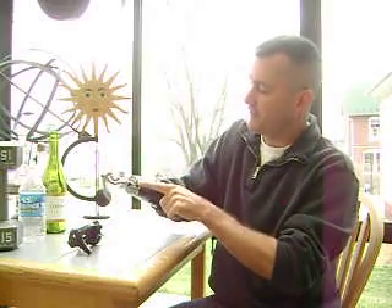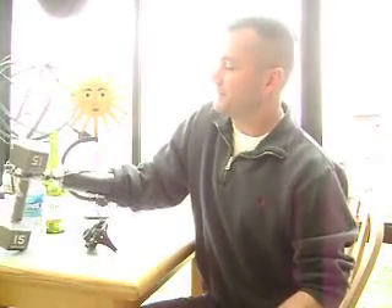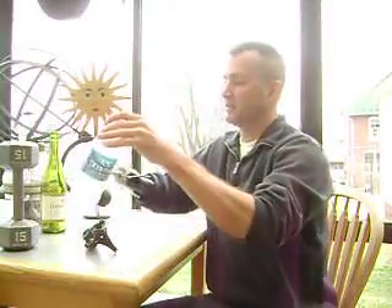If you're not familiar with how these work, you just put some tension bands on here and then this cable is attached to a harness that comes up around my shoulder. I reach out, it opens; I pull back, it closes. It can handle heavy-duty objects. And some of the limitations — because it's set to handle the heavy objects — lightweight objects like this water bottle don't fare too well.